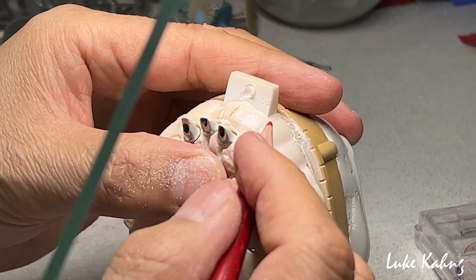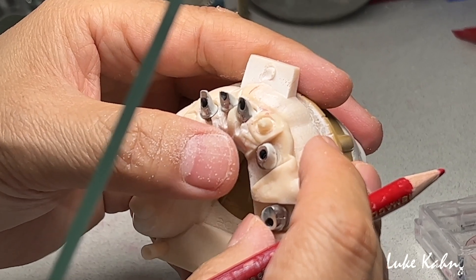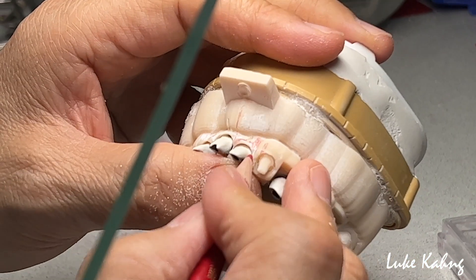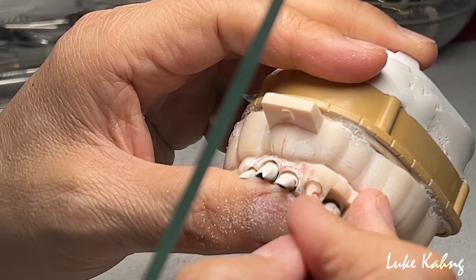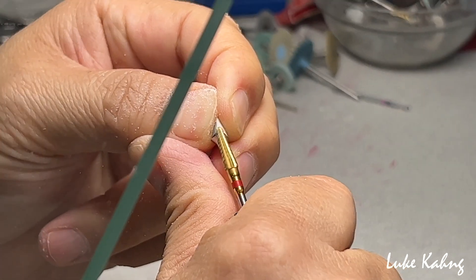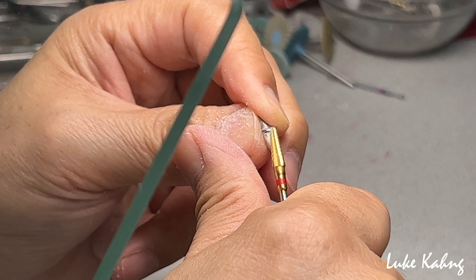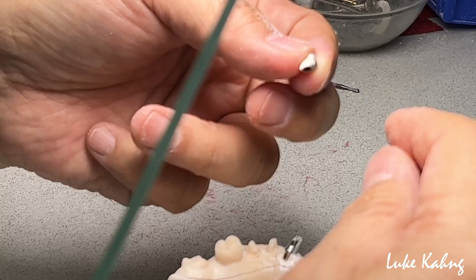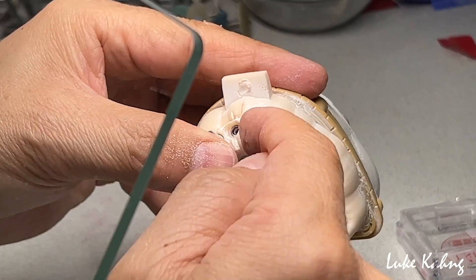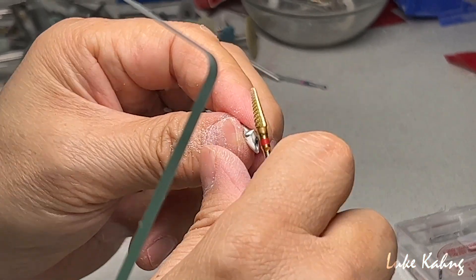Here's the problem with the 3-unit — whenever I make this, I do not have any room for the lateral. So either we can make a 3-unit bridge — I don't want that, this is natural tissue to me. The other option is I can trim all down. I can make a cantilever 2-unit and then one single. Even though they designed it nicely, I need to trim, and a little bit more sub-gingival. Then I can have better room, which will lead to a cantilever that makes room so I don't engage with natural teeth in the back.